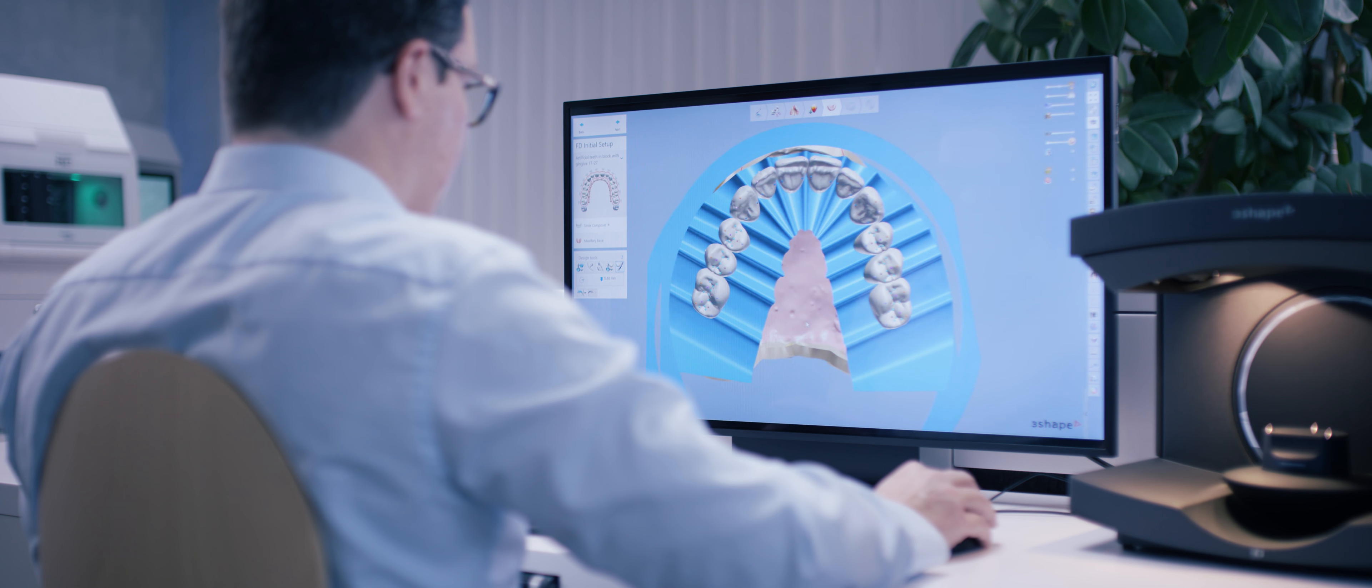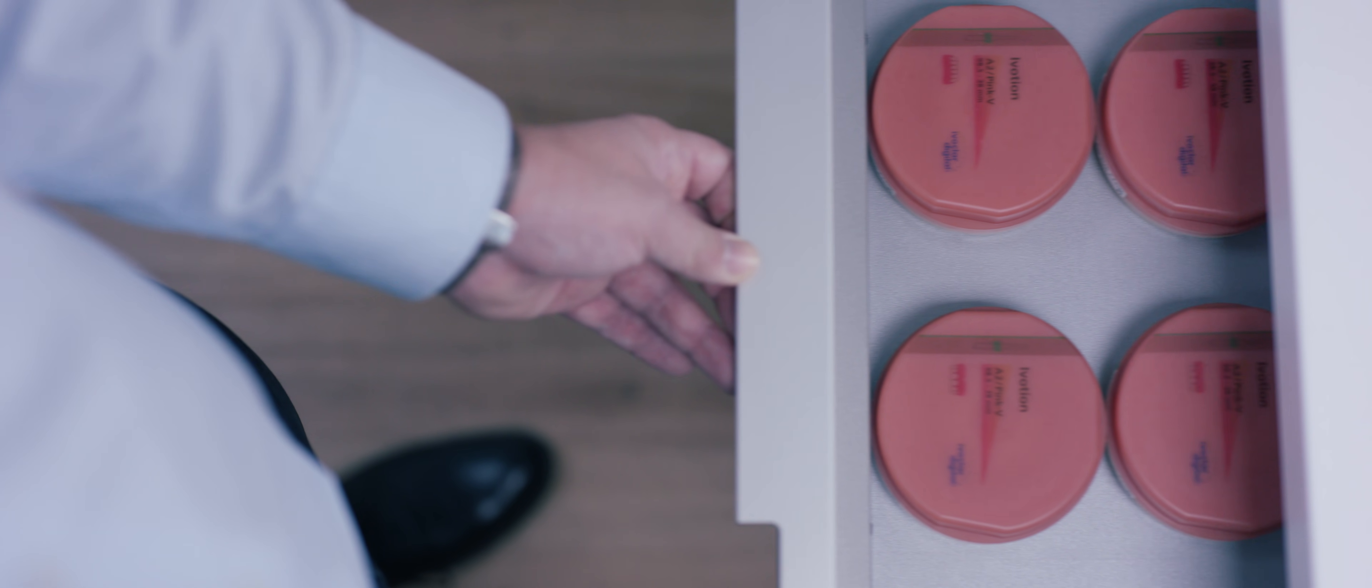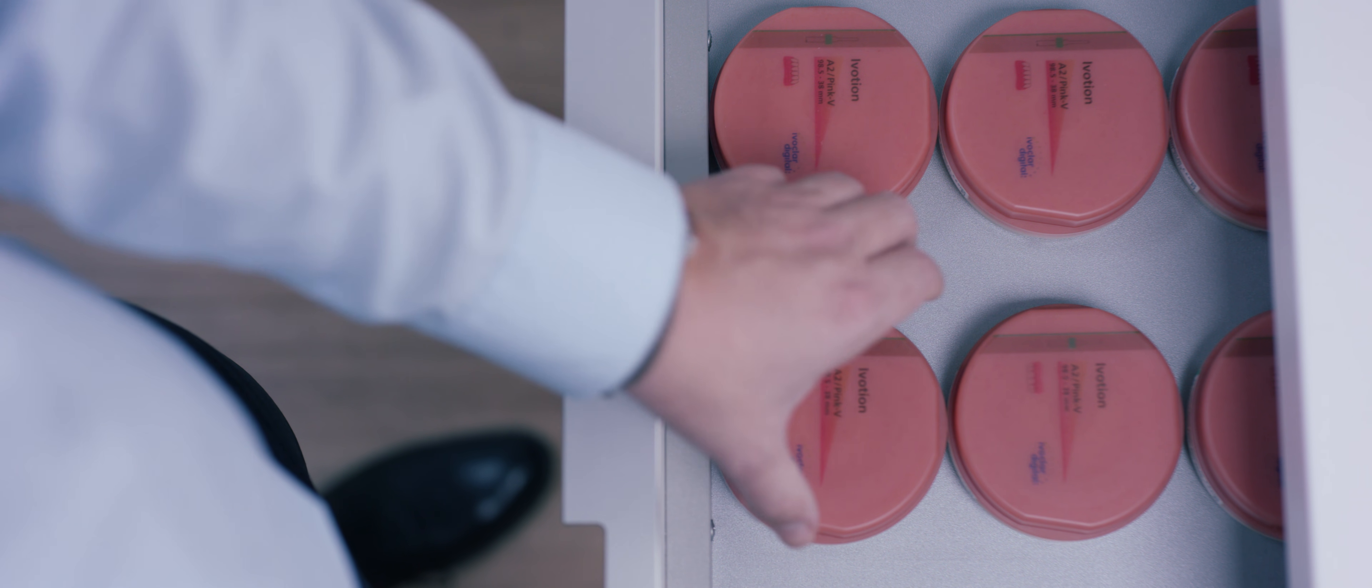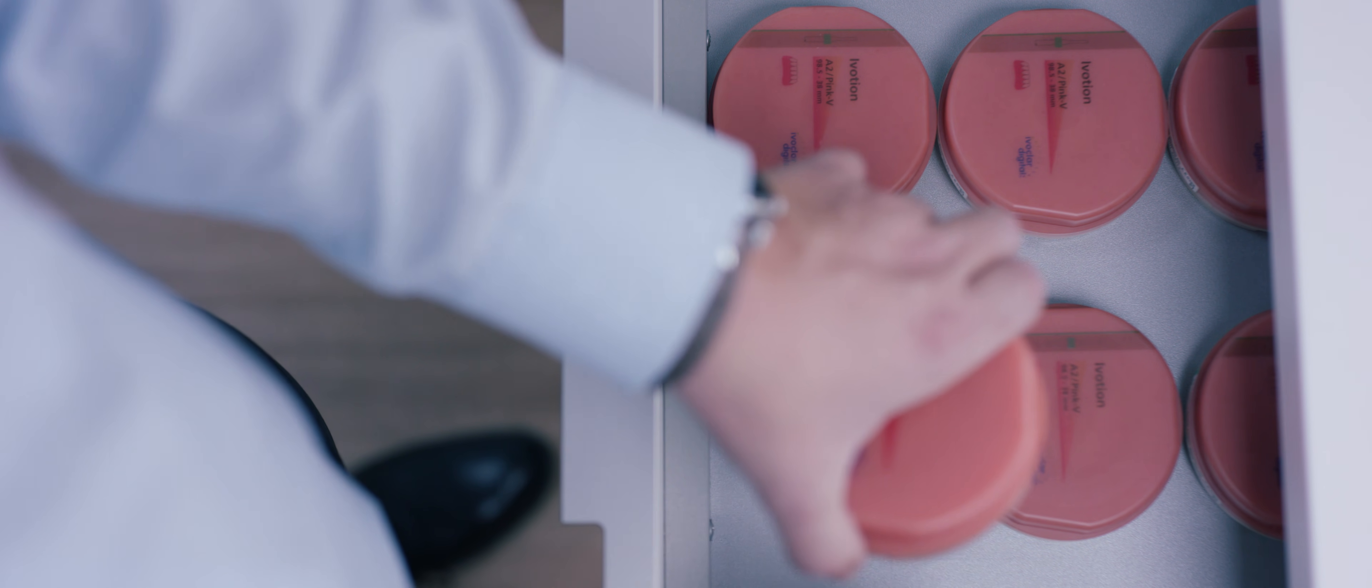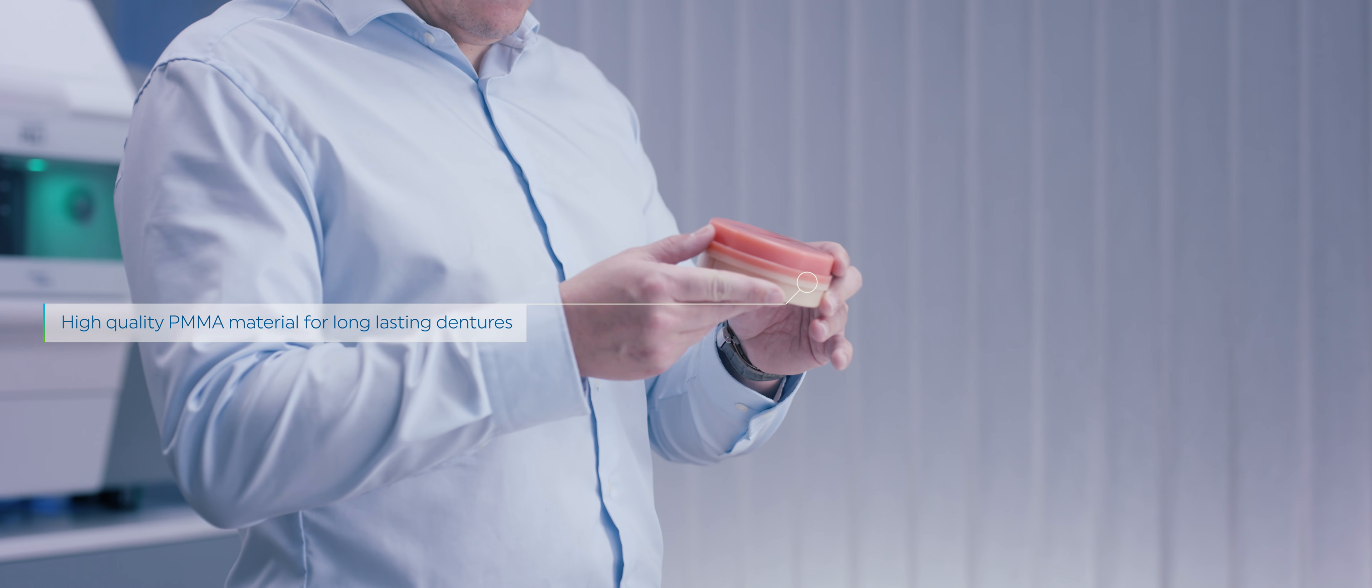The iVotion disk is true disruptive innovation that provides amazing efficiency. A monolithic solution in only one uninterrupted milling cycle without bonding, as it combines high quality denture base and teeth material.